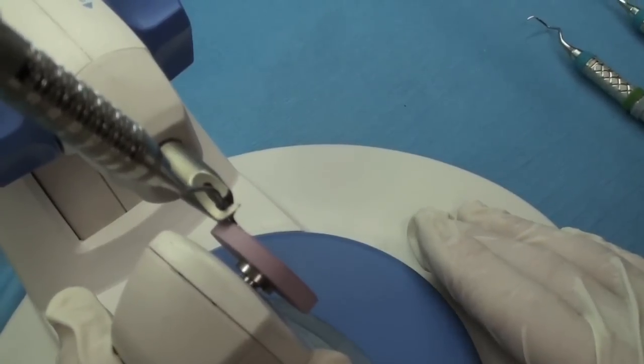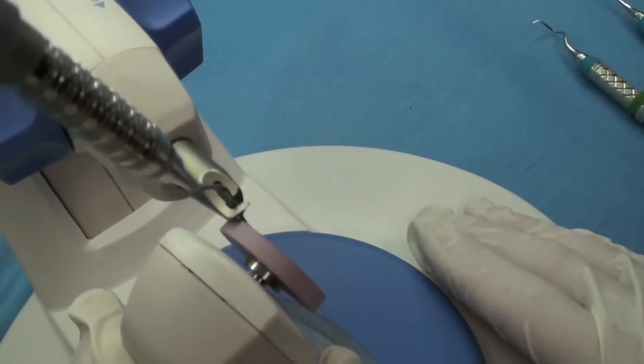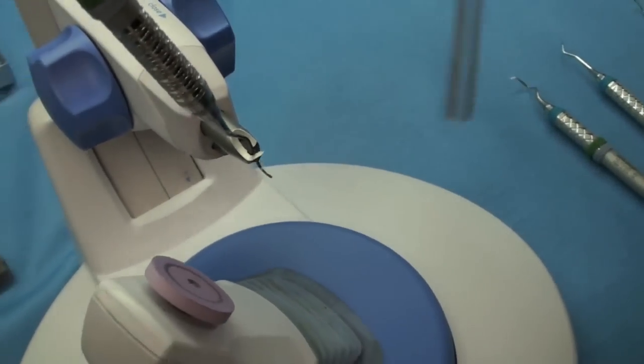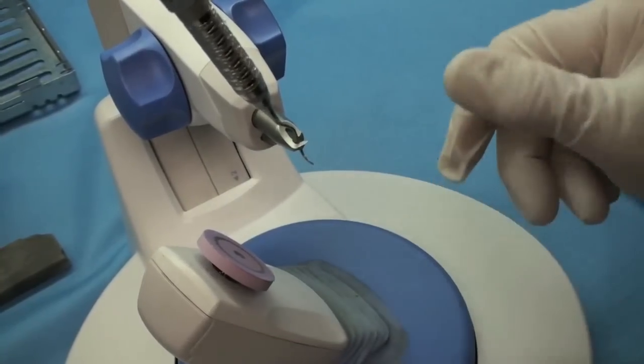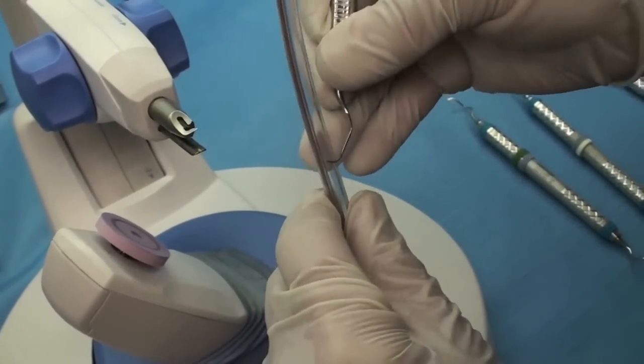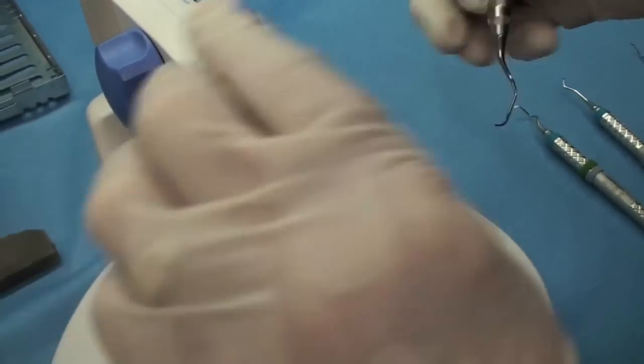Of course, first you check it first to see if it's dull or not. And then you just turn it on and you sharpen it. And then you can check while it's in there. It catches nicely. So you can take it out. And if you want to check it again. See, you really, I want you to hear a ping when you know it's sharp.